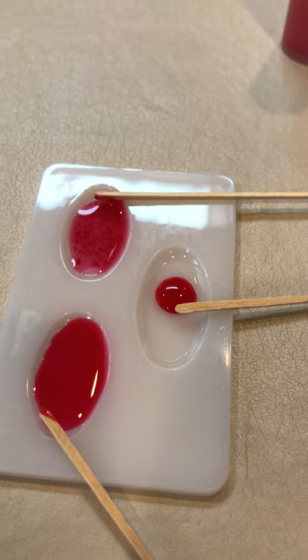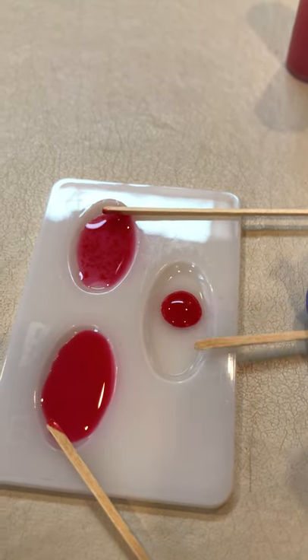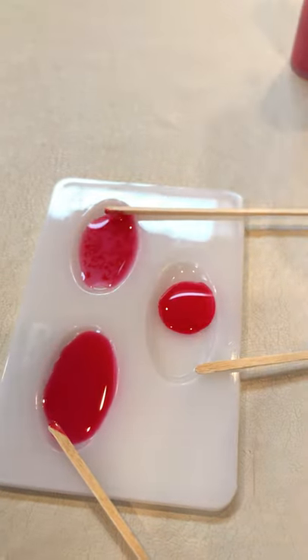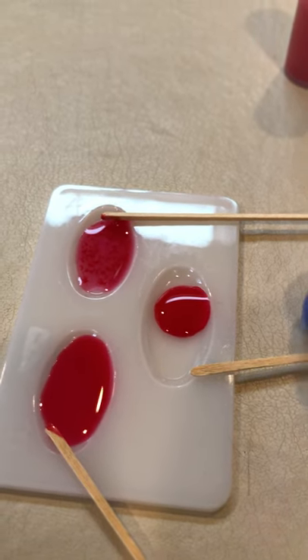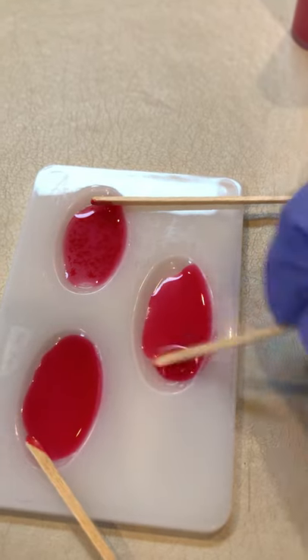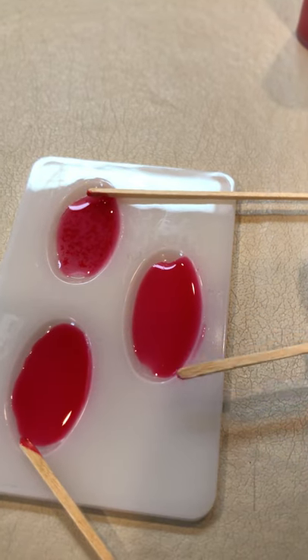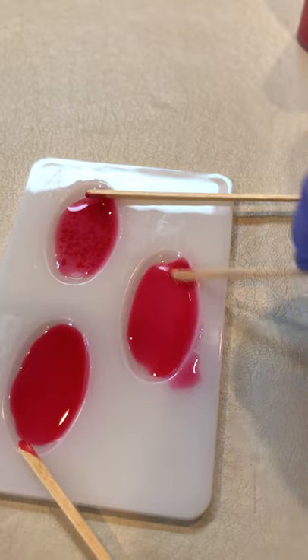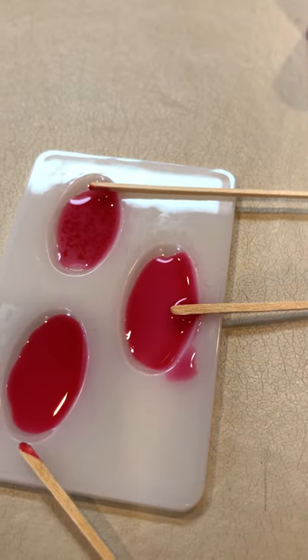Finally, in our last well, this will help us determine whether our blood is positive or negative. We're going to add a drop of anti-D, otherwise known as anti-RH serum. Give this a little mix, and once again we have no agglutination — everything's remaining nice and smooth, with no sign of clumping or clotting.